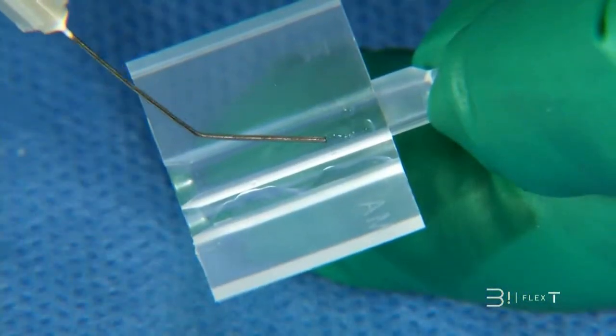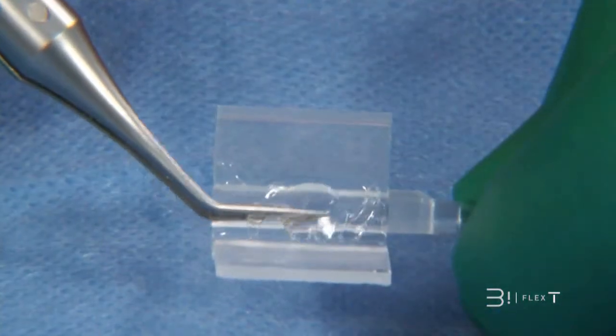Put the biflex implant in the middle of the cartridge, covered with viscoelastic gel beforehand.